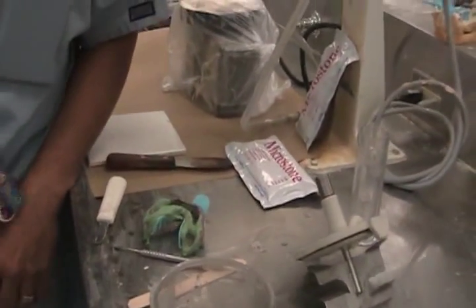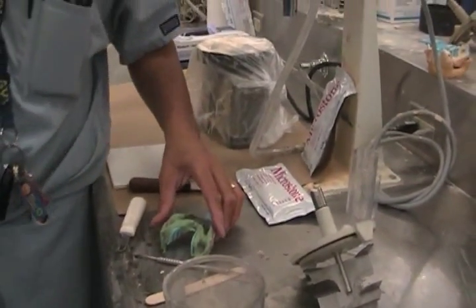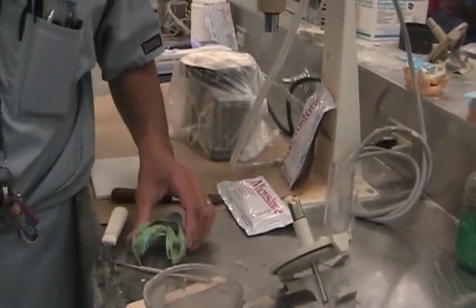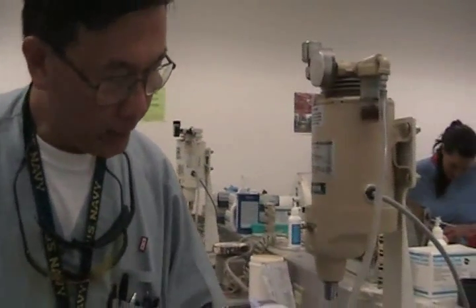I've been caught in so many emergencies that you have to adapt. What I normally do is I take a little stone from the mix, vibrate it in, guide it, take my time to make sure I don't have any bubbles trapped. Do I do that every time? No, I don't. But it's a good way to start — it really makes you pay attention. Because all it takes is one bubble, a singular mass, and it's gone. You've got to redo it again. So just take the time.